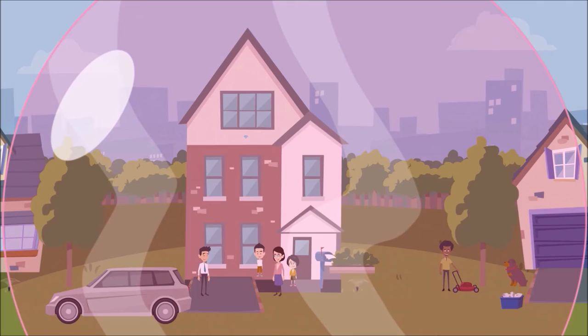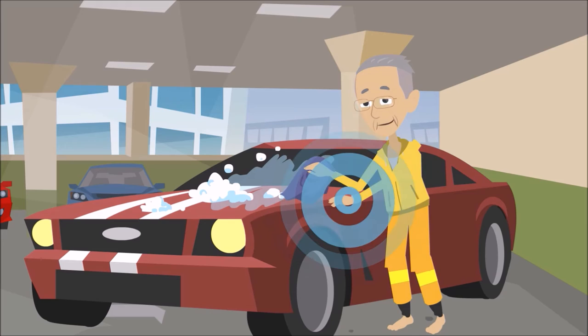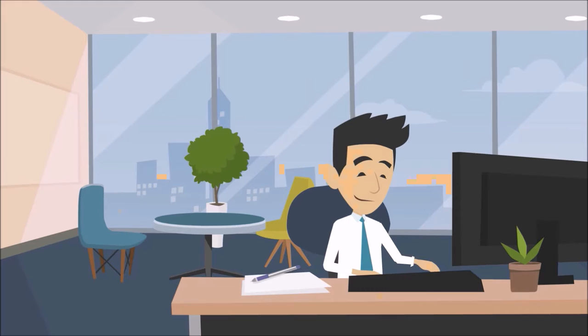Just plug in the base to your internet router for complete home and garden coverage, with SOS buttons, always listening for signs of a fall, and our unique wellness checks when the wristband buzzes at a suitable time and the wearer confirms they're ok by pressing a single button.